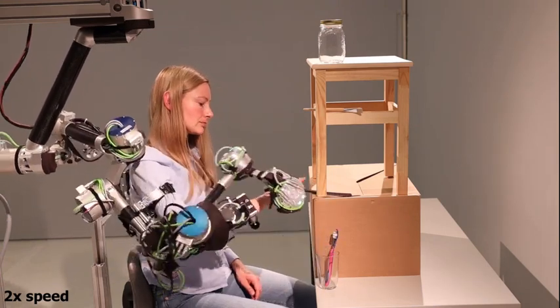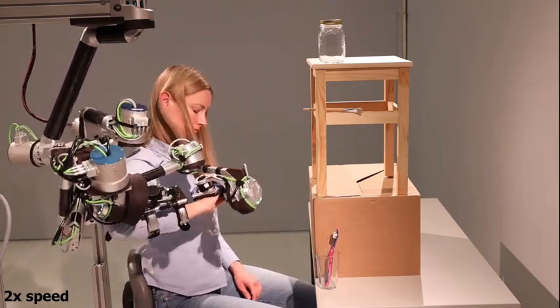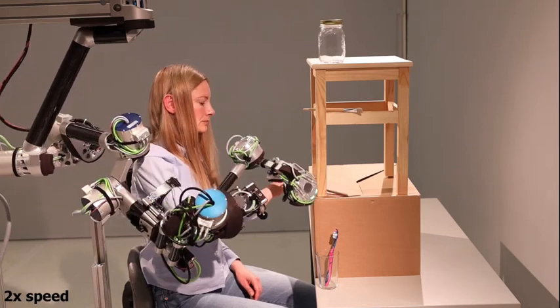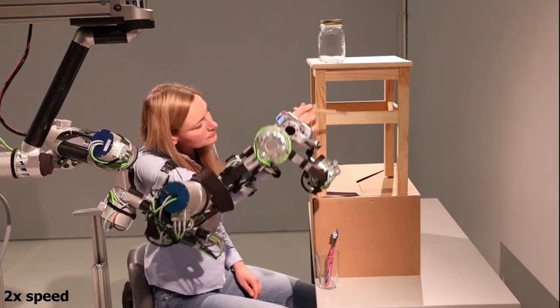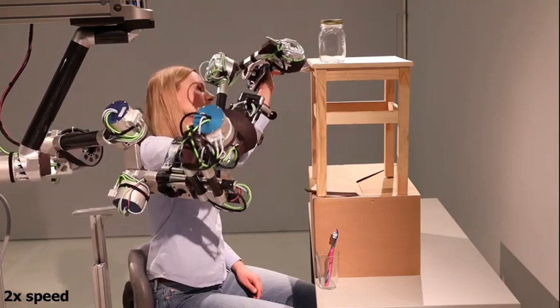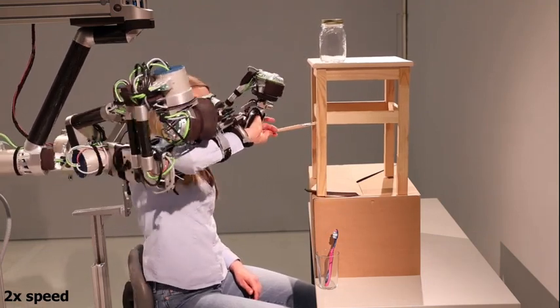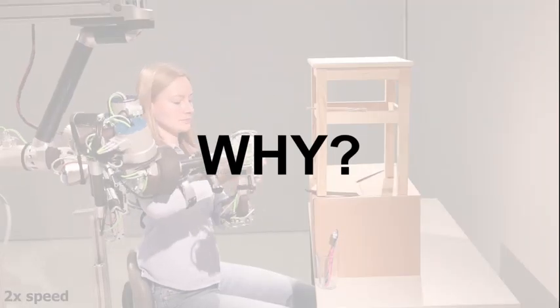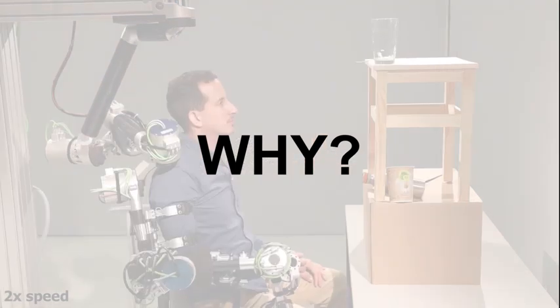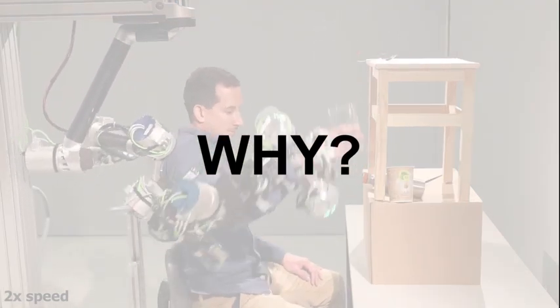One of the key challenges in automation is collaboration between automated systems and human co-workers. To date, most robots still operate in strictly separated workspaces from humans. However, today I will introduce a powerful robotic system that is built to intimately engage with humans. Before we get into the technical details, let's assess the question of what motivated us to develop such a device.